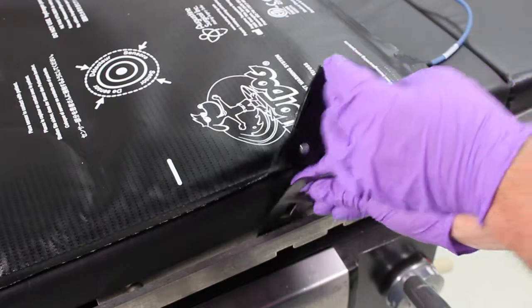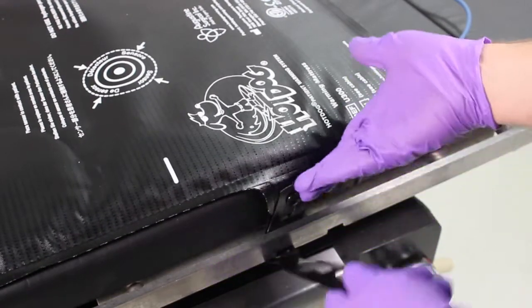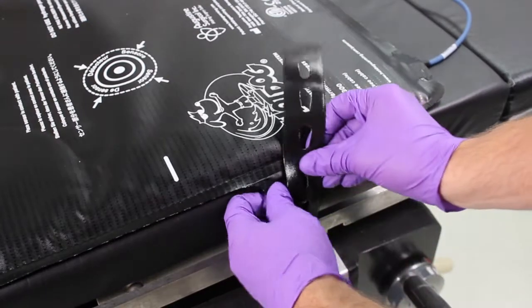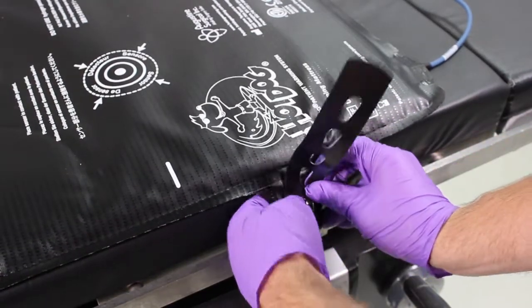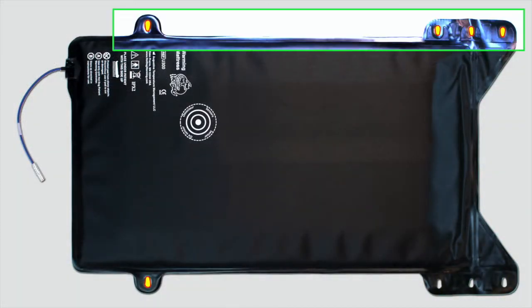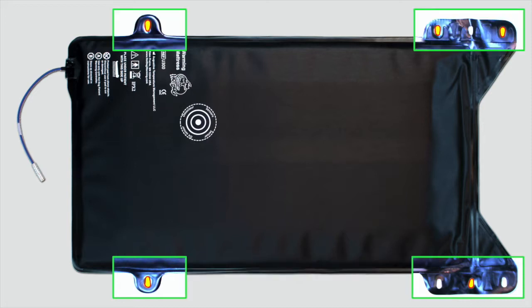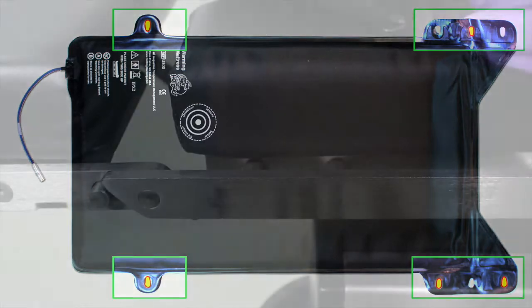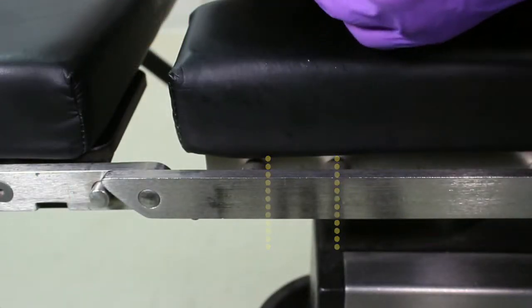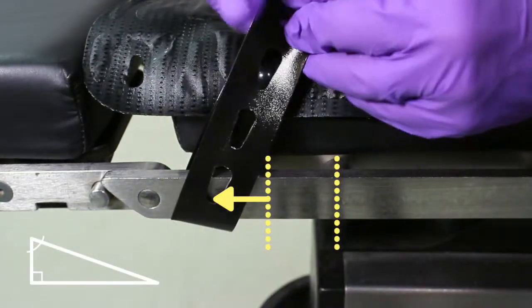Connect the strap over the mushroom button. To secure the warming mattress to the OR table, thread the strap through the side rail and fold back over. Then pull the strap taut and secure it to the same mushroom button. Each side of the U300 warming mattress has 4 securement loops. Two or 3 straps should be secured to the bed rails per side for maximizing stability. If a loop is positioned over a side rail connector or other obstruction, use one of the other available loops.